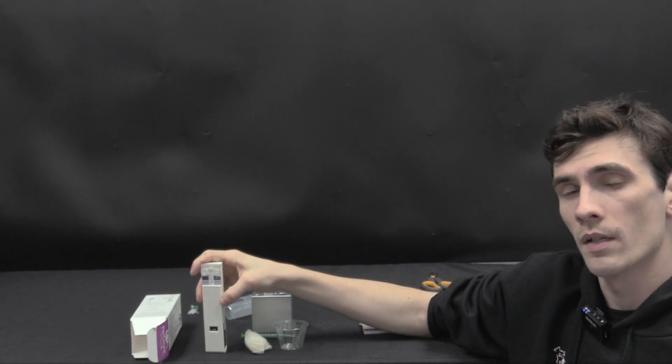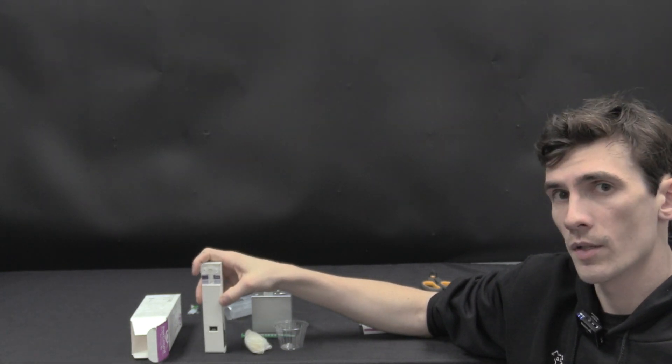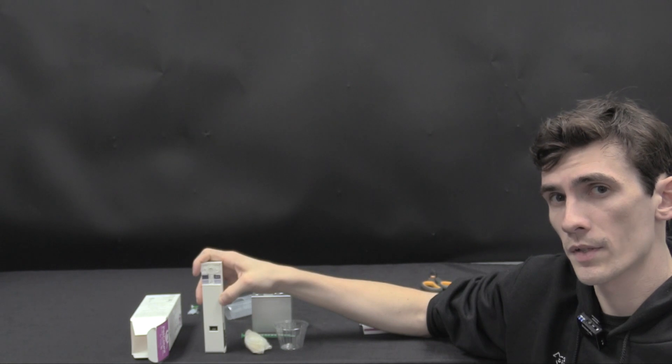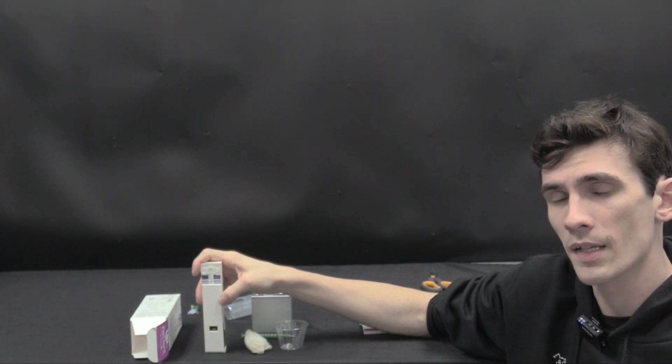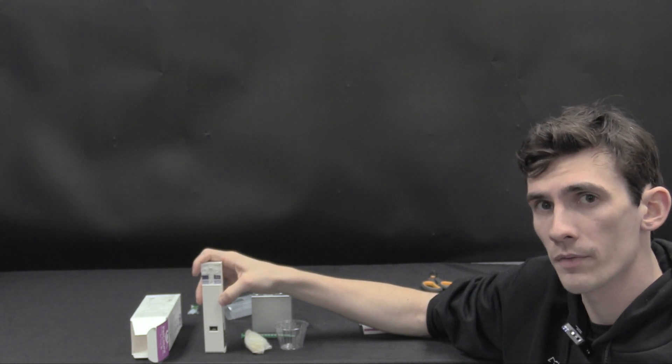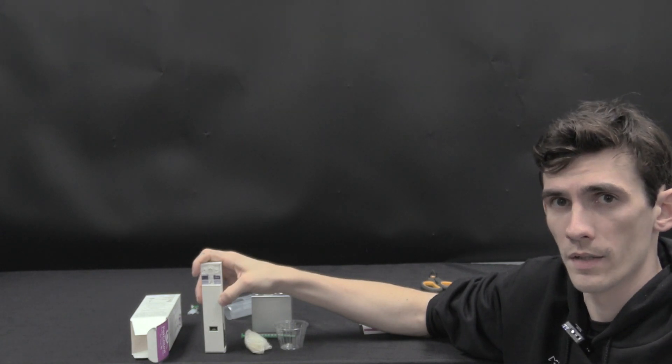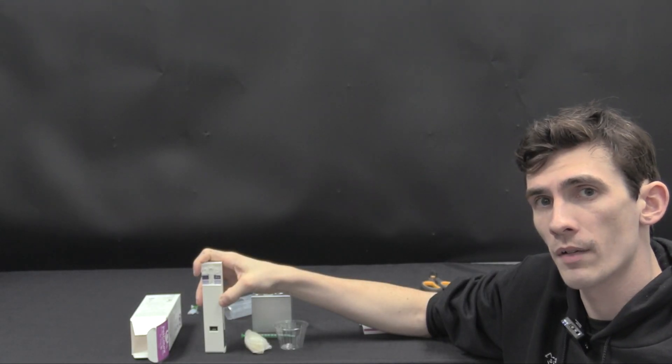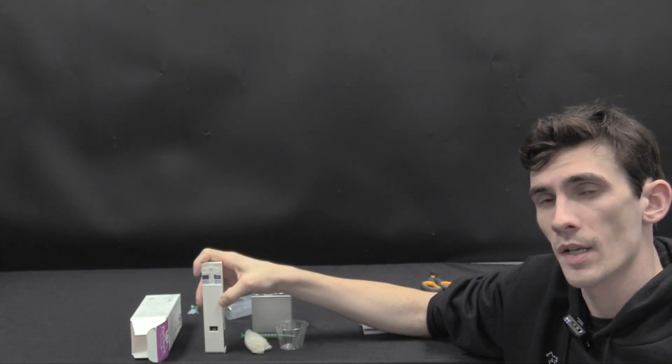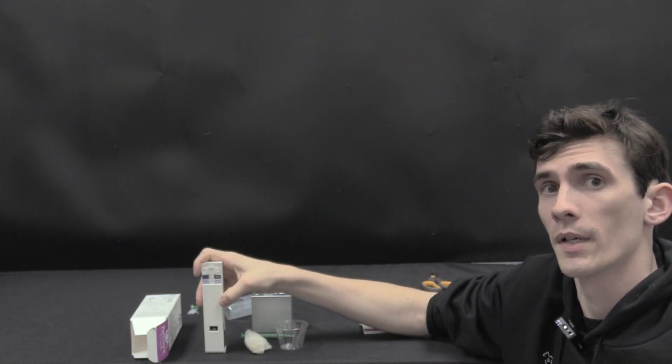This is going to be incredibly useful for helping you to determine how much semen to deposit and if that semen is healthy enough to produce a viable pregnancy. It's intended to be used as an advanced screening device separating out good sperm counts from those that are not as good or poor sperm counts.